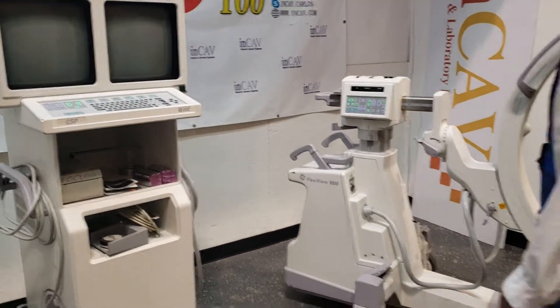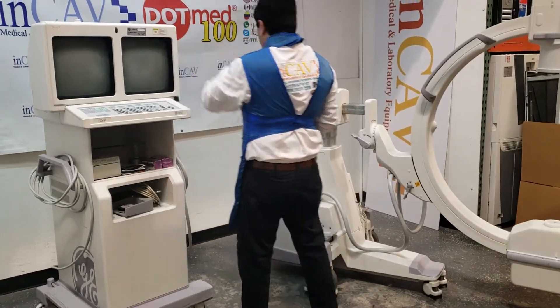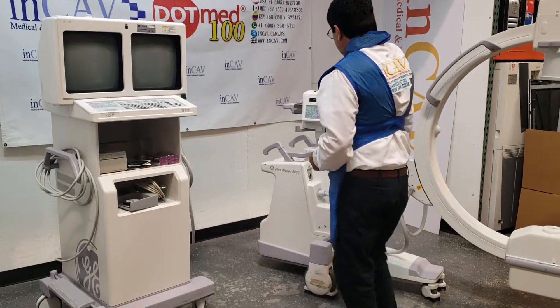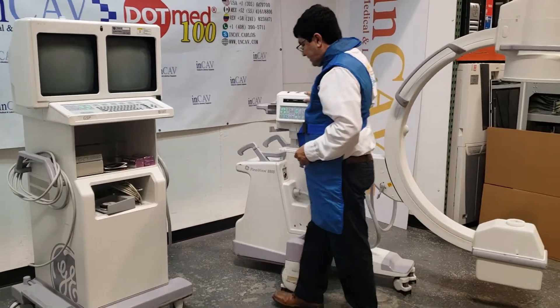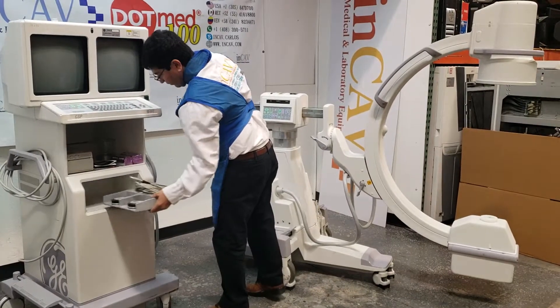Let's keep the system clean. Don't put soda, don't put coffee on the keyboard here. You can tip it on. The foot switch can be stored here in this slot or here.